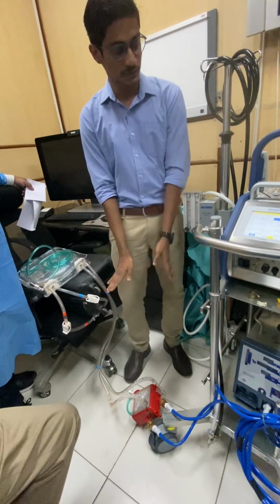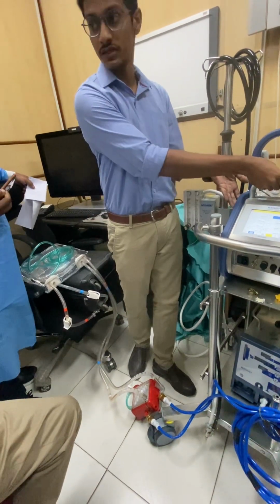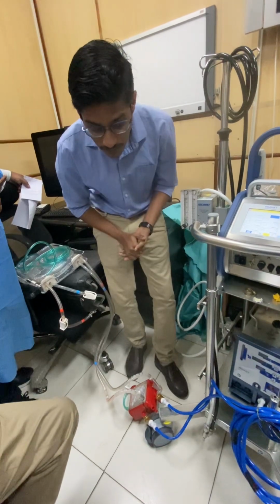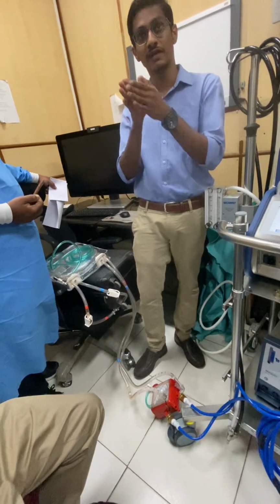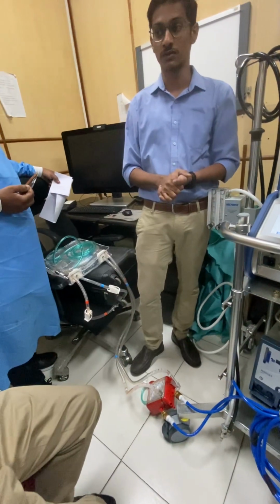When you are transporting, you will only use this thing. Nothing else will be there. Only this single thing will be there, only for transport, not for long support. Yes, sir. Not for long support. For long support, you will require this because after some time the temperature will gradually slide down. Slightly it will decrease.